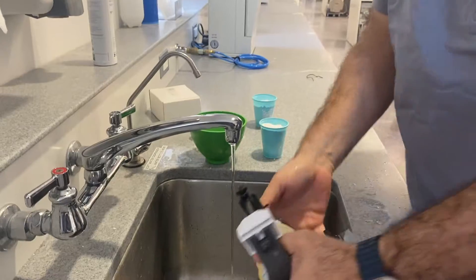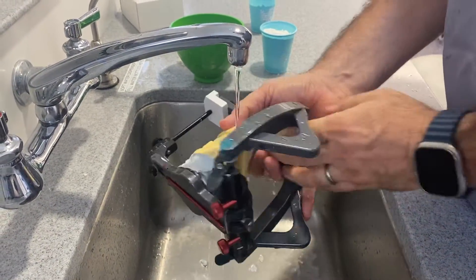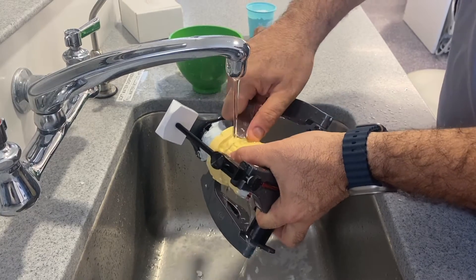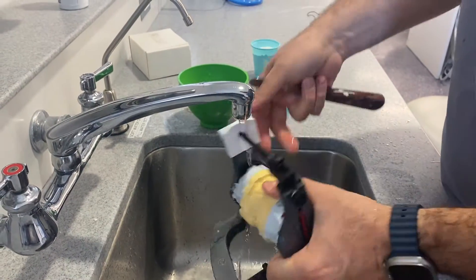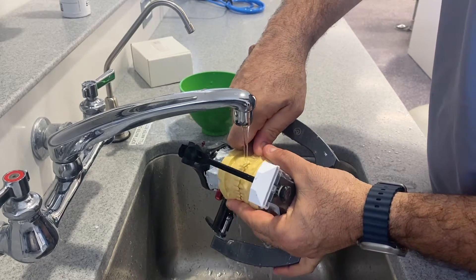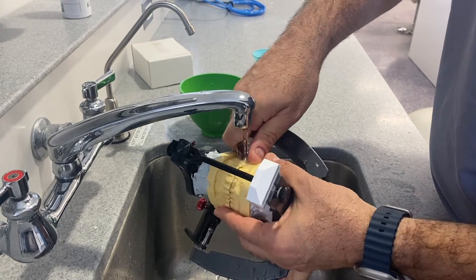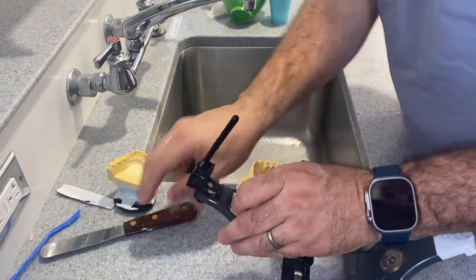At this point, I want to wet it out. With the use of a spatula, let's try to get rid of the hot glue that we had securing the teeth. Be careful not to damage the teeth. Now it's time to make these guys pretty.